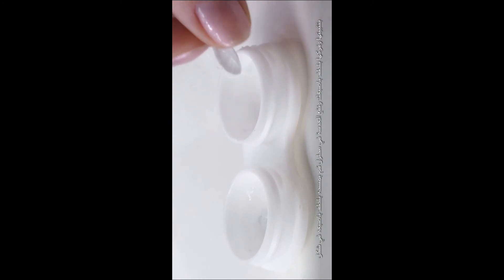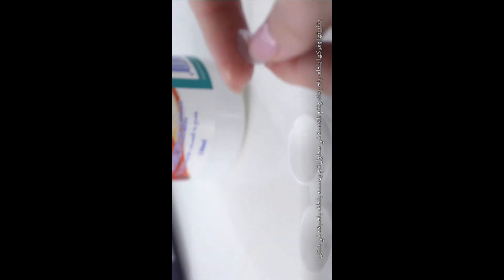Step 4: Take out the first contact lens. Step 5: Clean your Artista contact lenses. Place the Artista contact lens in the palm of your hand. Flip the contact lens again and place it in its proper case.